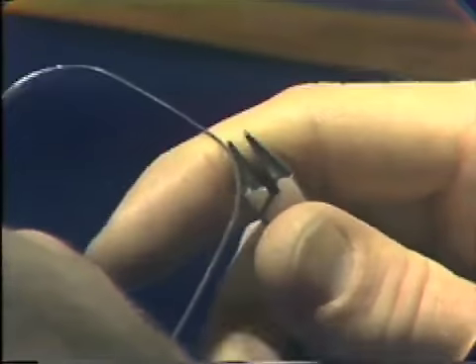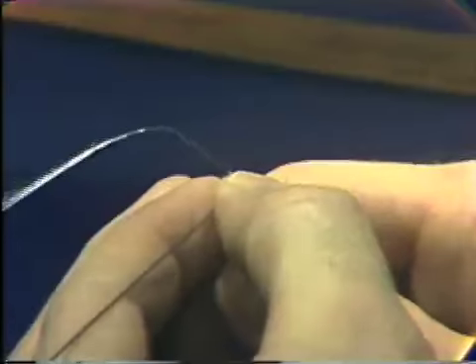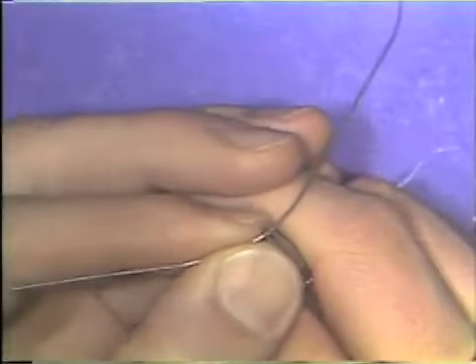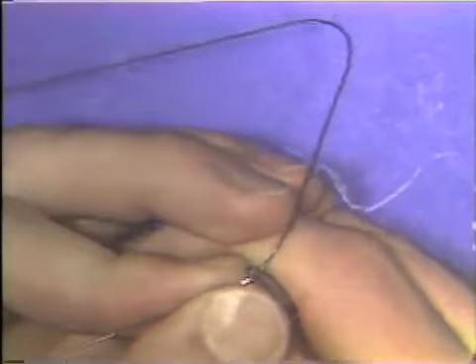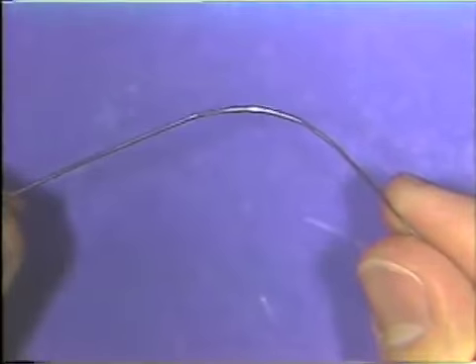The areas that were too flat are simply bent in the usual manner to give them some curvature. And with this technique, you can continue to adjust the wire until the curve is smooth.